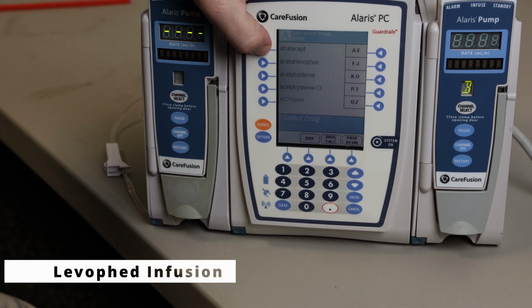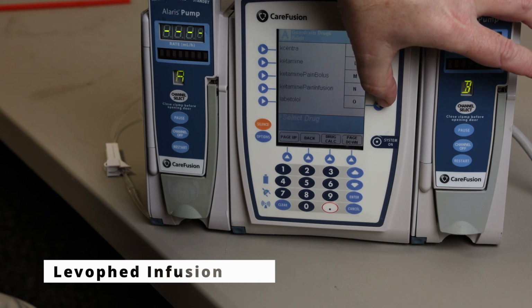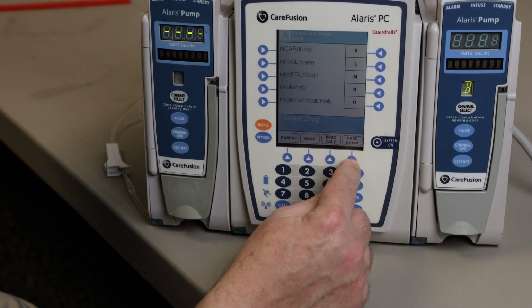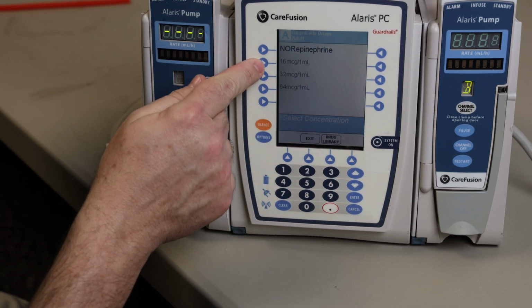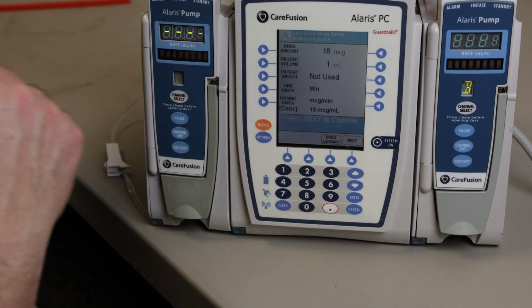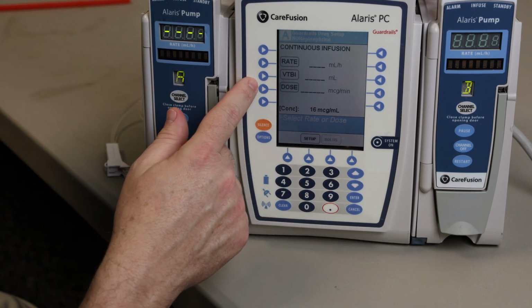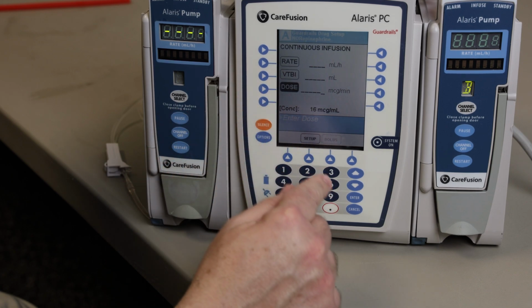The next drug we're going to talk about is going to be Levophed or norepinephrine. You're going to find it through the guardrail system. Go through your menu, through your alphabet menu, and find N and find norepinephrine. Now you have multiple different concentrations. I'm going to select 16 mics in ml, which is generally what is going to be standard in different places. Or if you're going to start something on the truck, I would surely suggest that you use 16 mics in ml. That's what's going to be in the ED and ICU.